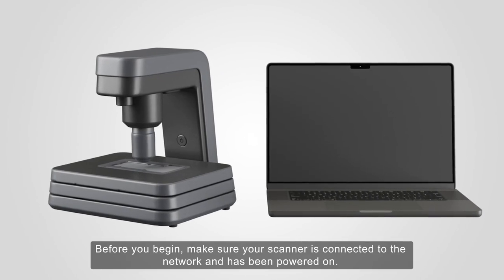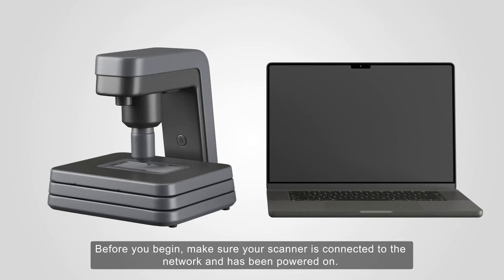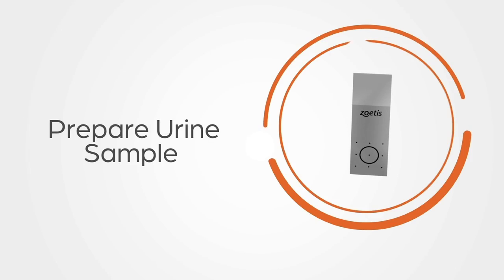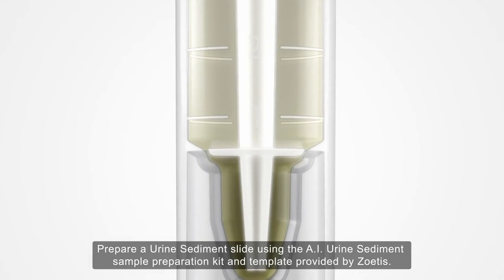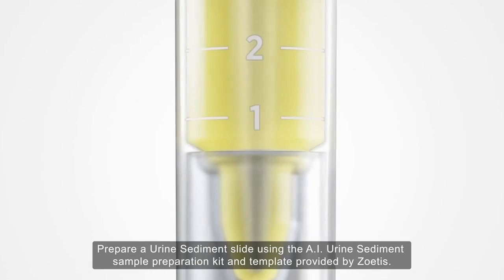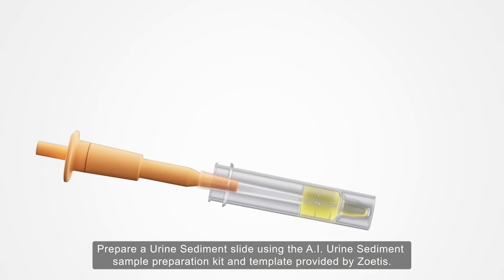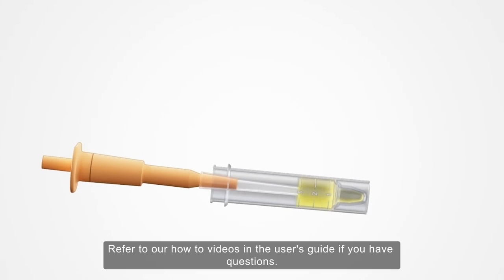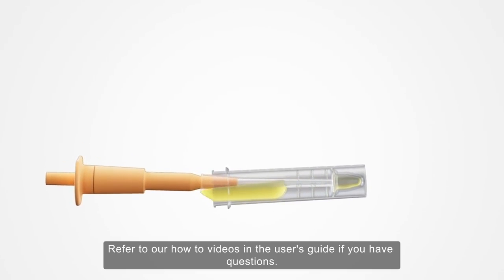Before you begin, make sure your scanner is connected to the network and has been powered on. Prepare a urine sediment slide using the AI urine sediment sample preparation kit and template provided by Zoetis. Refer to our how-to videos in the user's guide if you have questions.